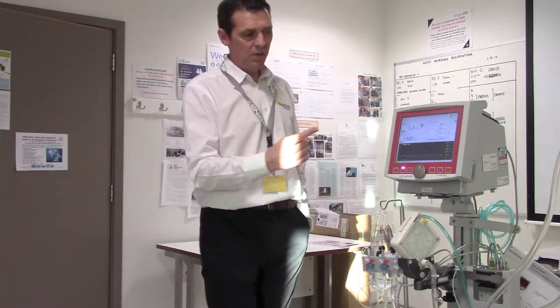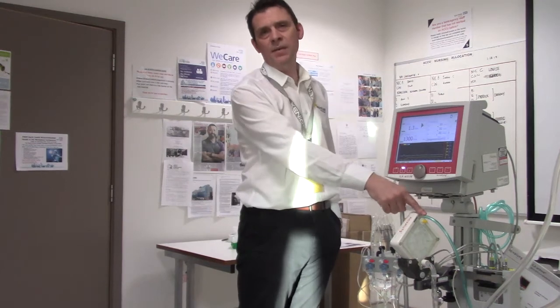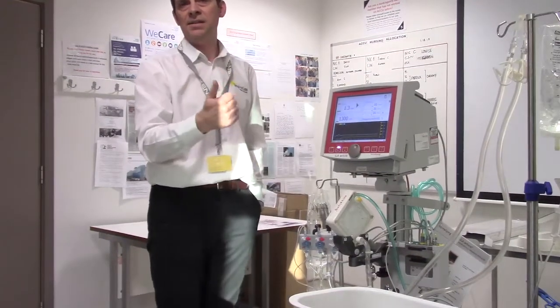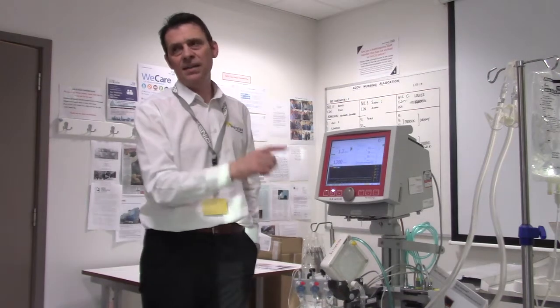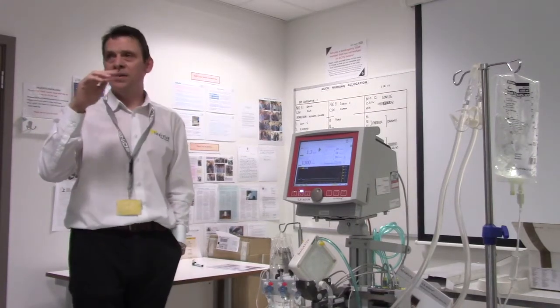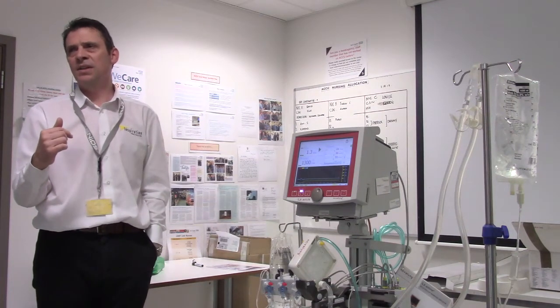When you're happy with stable gases, reduce sweep gas flow gradually so you're no longer providing support — see if the patient's own lungs can clear the CO2. Take sweep gas all the way to zero eventually, then leave it running as a complete shunt doing nothing for 12 hours. The threshold to remove this system should be very high, because if there's a rebound you'll have to put fresh cannulas into sites that have already been used, which isn't easy.